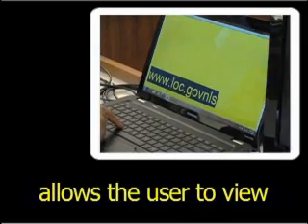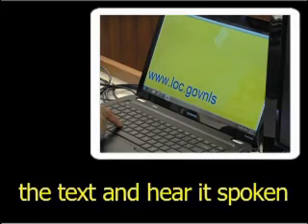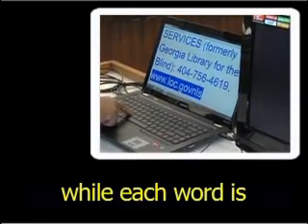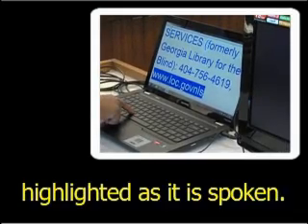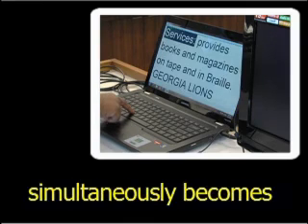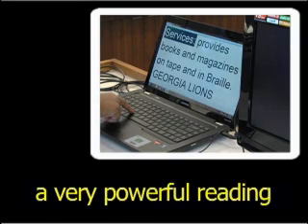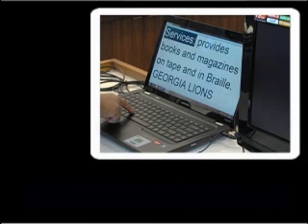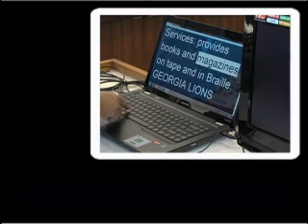This final mode of operation allows the user to view the text and hear it spoken via synthesized speech, while each word is highlighted as it is spoken. This combination of seeing the text and hearing it spoken simultaneously becomes a very powerful reading and learning tool for many individuals. Services provide books and magazines.